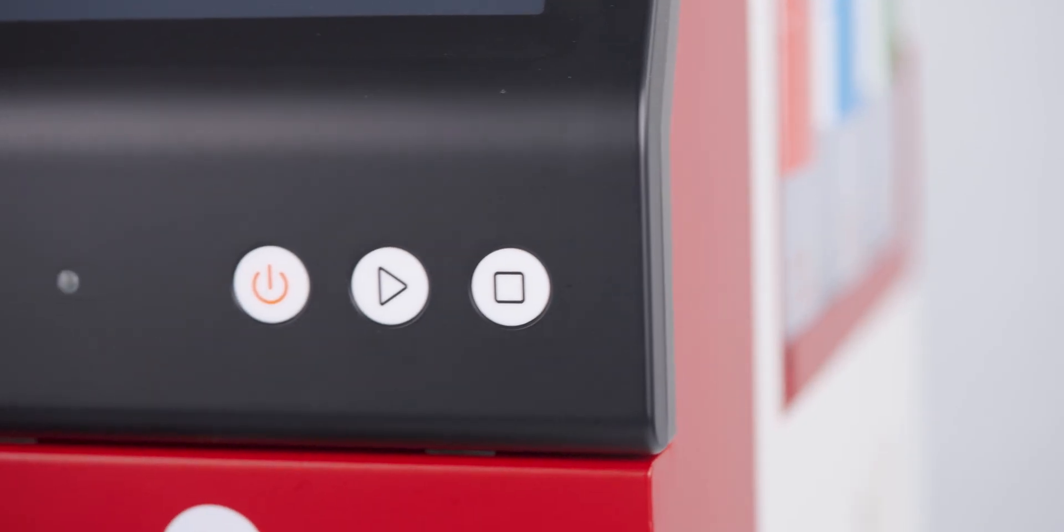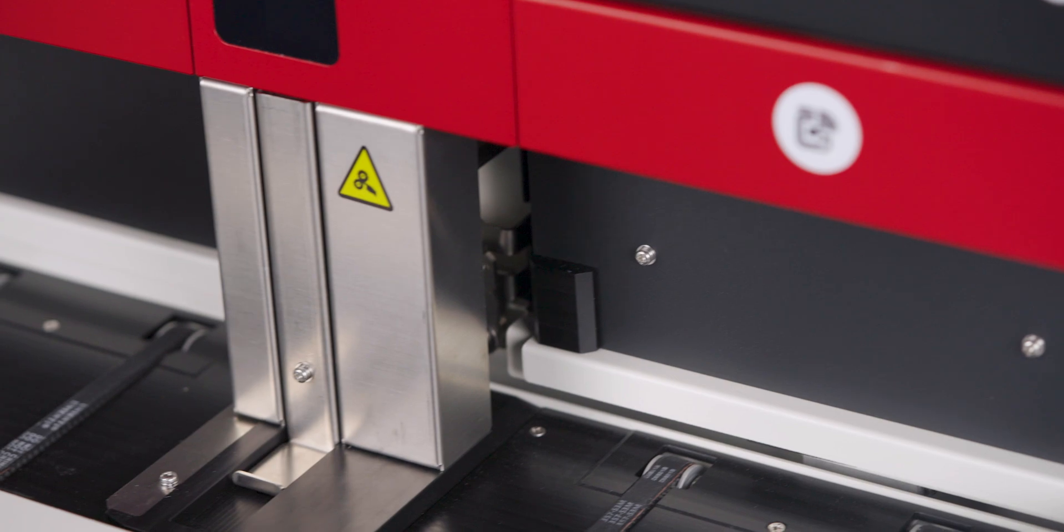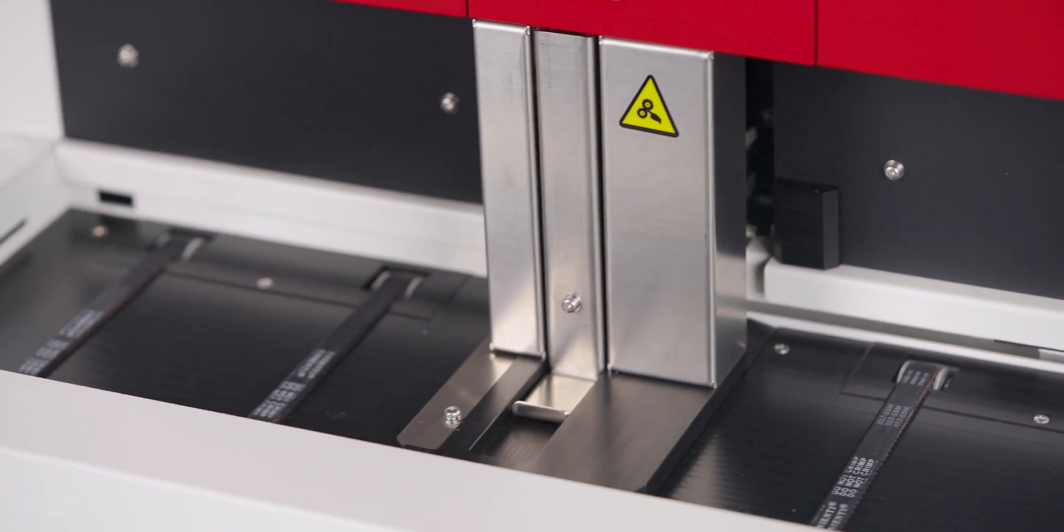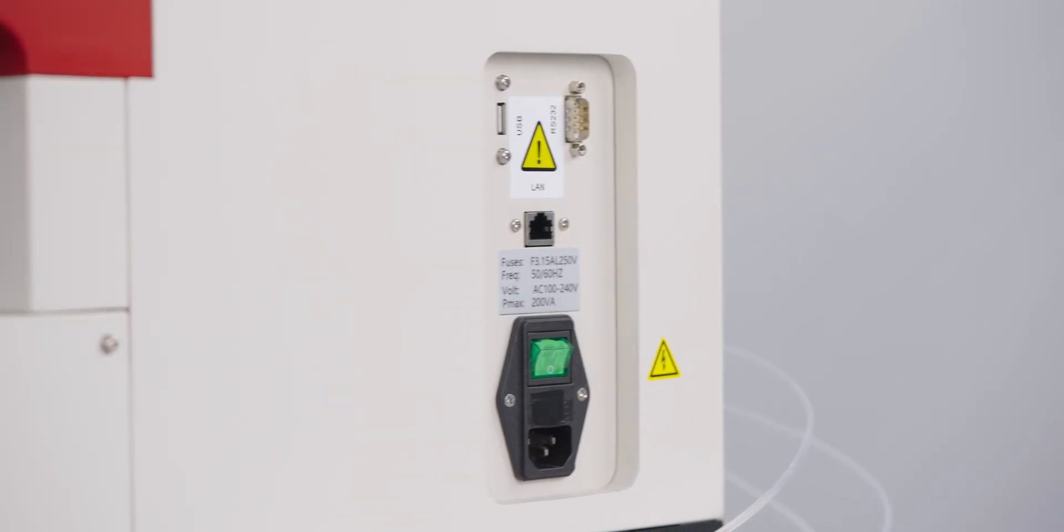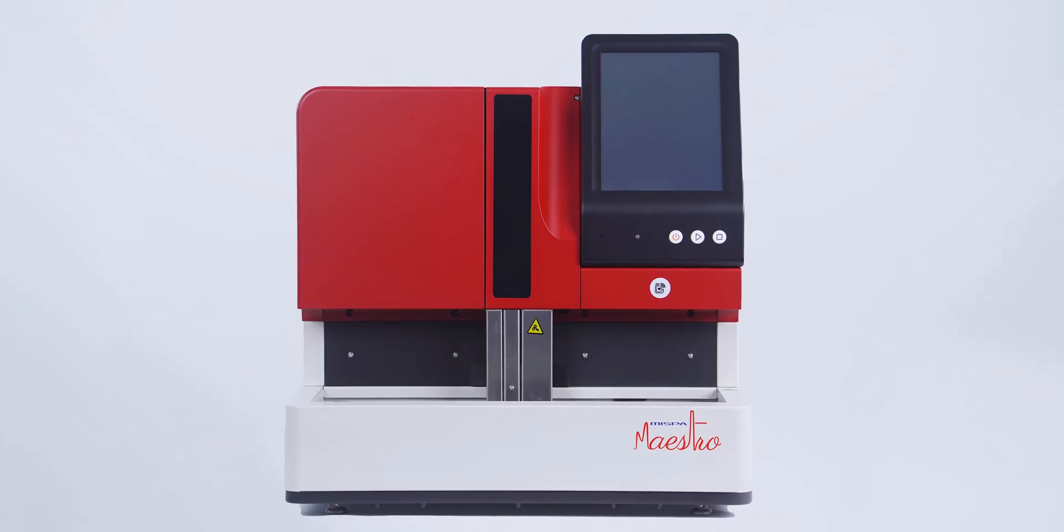With its smart design and advanced technology, the MISPA Maestro delivers fast, accurate and interference-free HbA1c testing for a seamless and reliable diagnostic workflow.